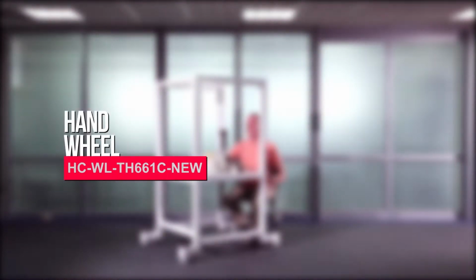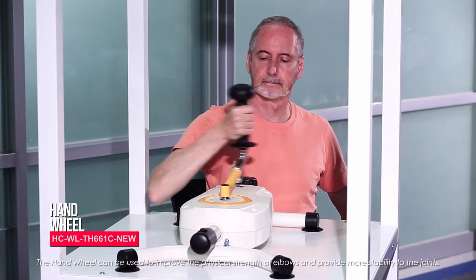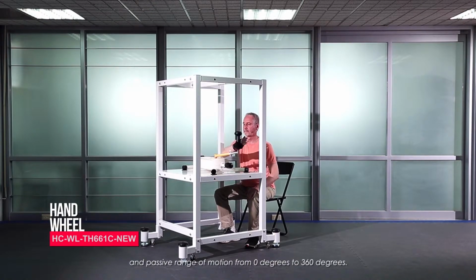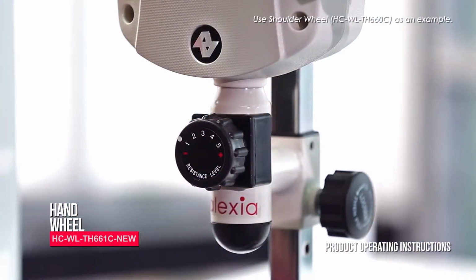Hand wheel. The hand wheel can be used to improve the physical strength of elbows and provide more stability to the joints. The goniometer on the hand wheel can be used to measure both active and passive range of motion from 0 degrees to 360 degrees. Product operating instructions.